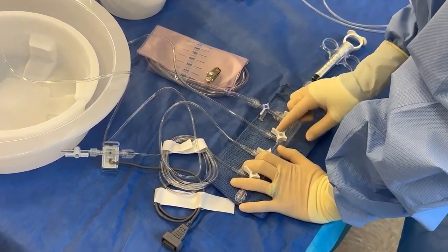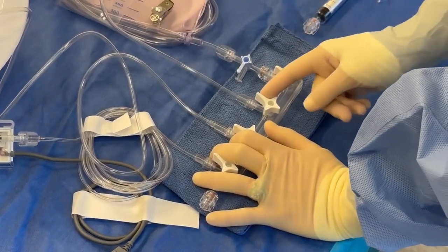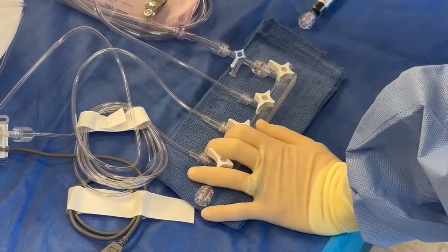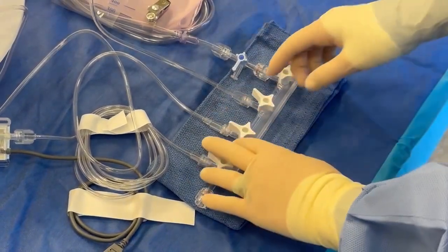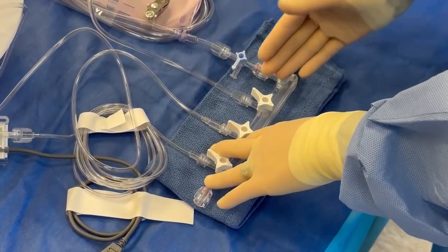So I like to go ahead and turn this line on. To turn it on to bleed back, I turn it to the left. When I do that, the angle's this way, and these arrows represent the flow — see the flow from here to here? This is bleeding back from here to here. It's actually water. So in theory, as this one's bleeding back, it's thicker and it's coming out slower.